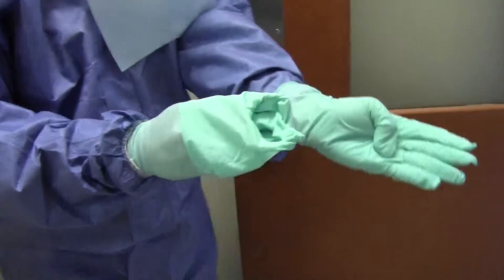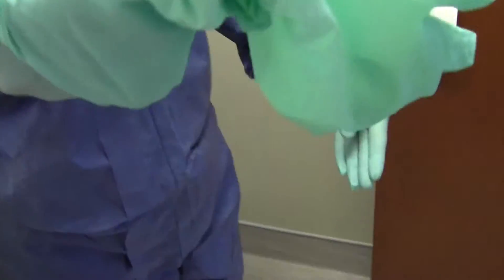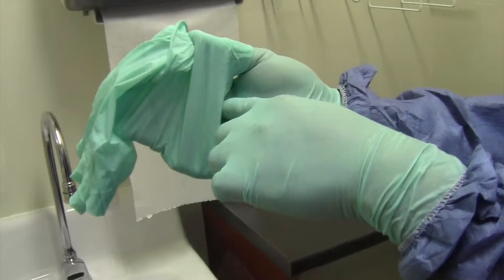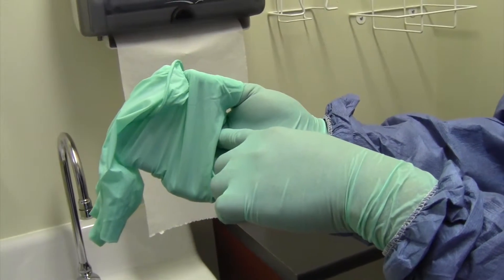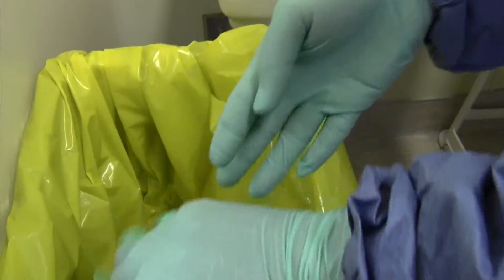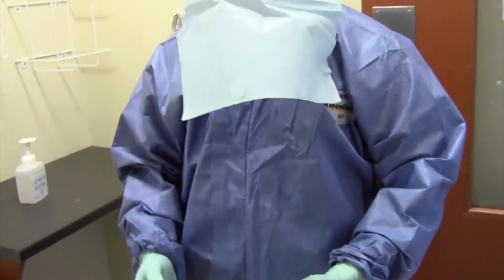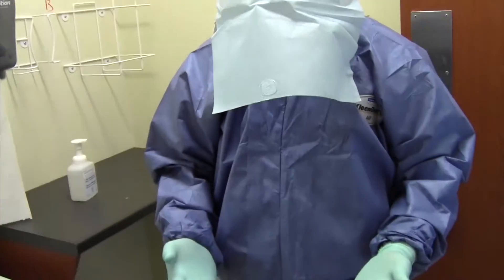Do the same with the opposite hand but remove the gloves all the way this time. Keep hold of the removed glove to provide a visual cue of where you might have inadvertently contaminated yourself. At the palm of the half-gloved hand, you will find an area that you would have only touched with the inside of your glove — gently push off the glove from that area. No matter how proficient you are with this process, leave nothing to chance; therefore, include Step 4.